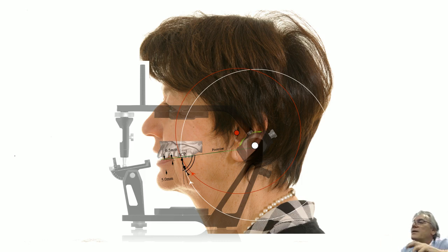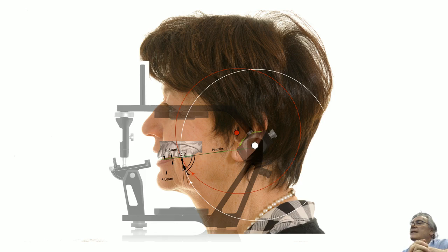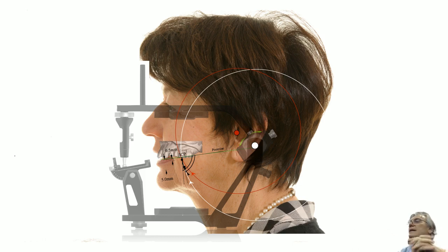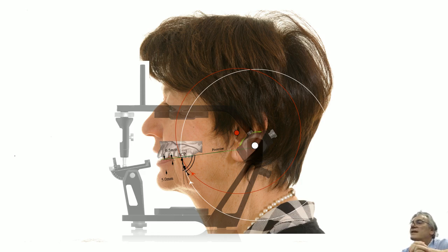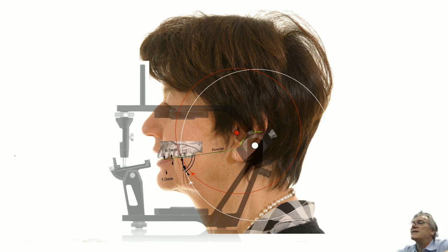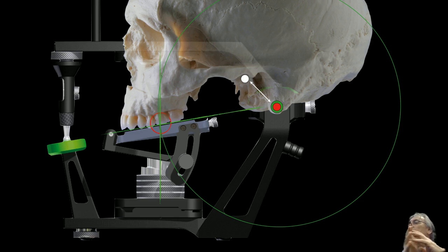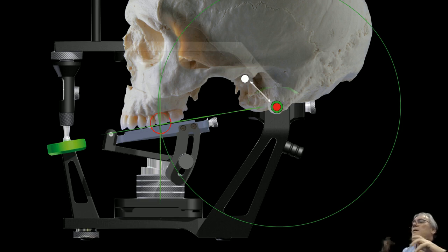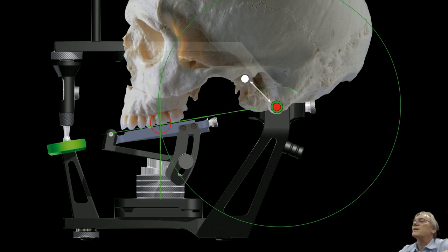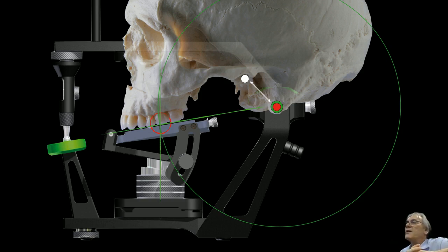The advantage comes when we need to directly open the bite on the articulator by increasing the vertical dimension. This increased movement will follow the geometry of the radius of the combined movement with the center of rotation placed on the mastoid, instead of falling backwards as it would if the center of rotation were placed on the condyles — thereby avoiding high contacts on the anterior region. On the PS1, the distance of the first molar to the center of rotation is 90 millimeters, established at the point where the vertical plane, the plane of occlusion, and the radius of the sphere with fulcrum on the mastoid process intersect.